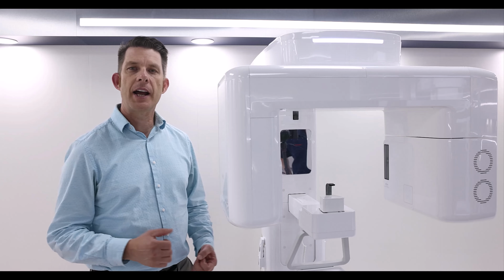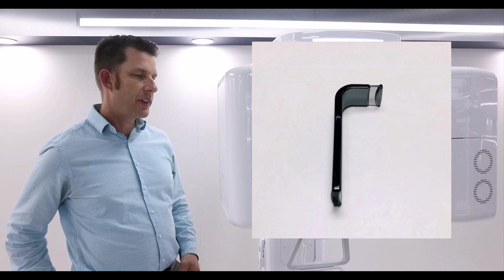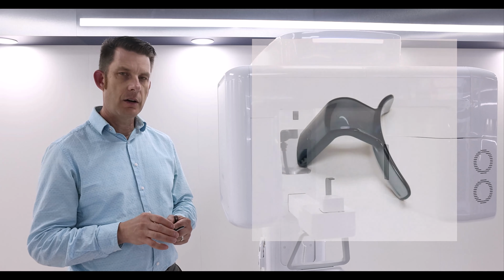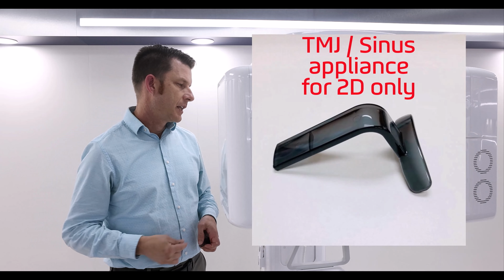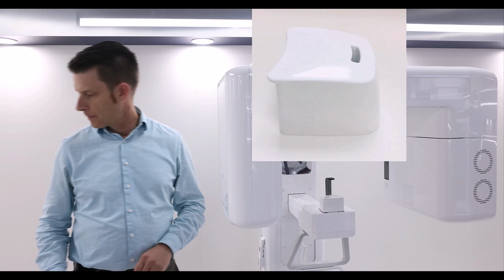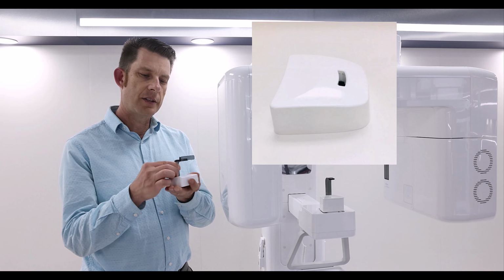Next, let's look at our A9 appliances. The A9 comes with your bite stick. Also comes with the edentulous cup and our TMJ and sinus appliance. The edentulous cup and the bite stick will utilize the large chin rest. Your TMJ and sinus appliance will utilize the shorter chin rest.